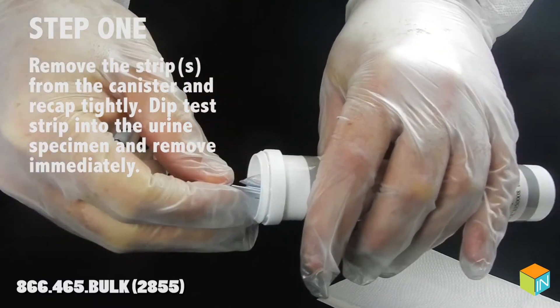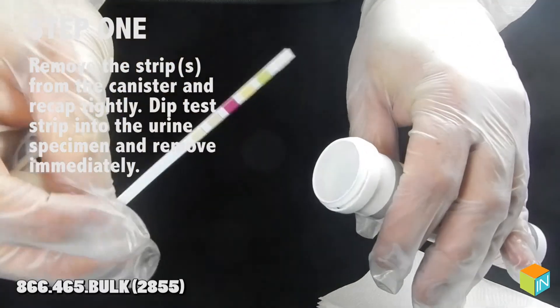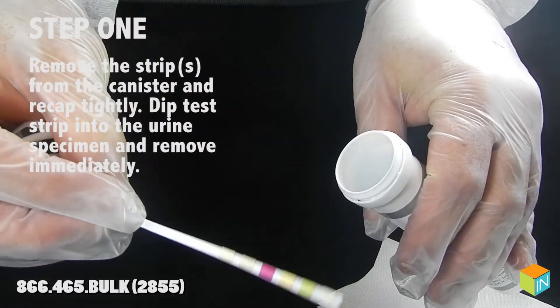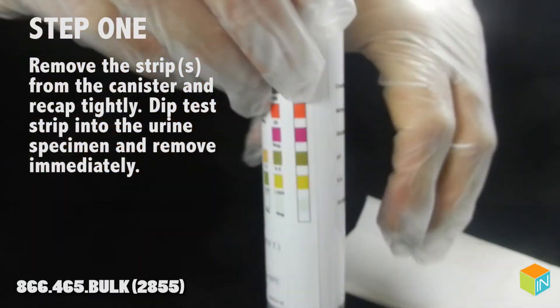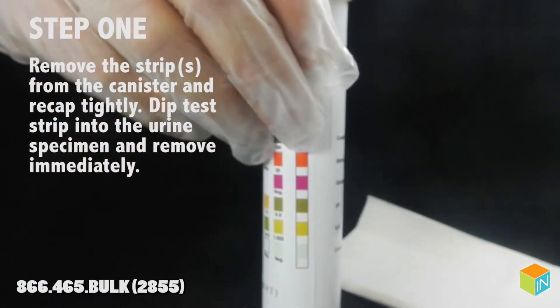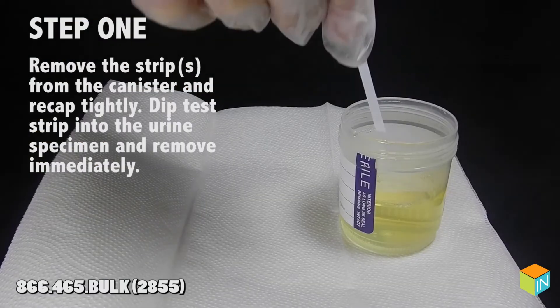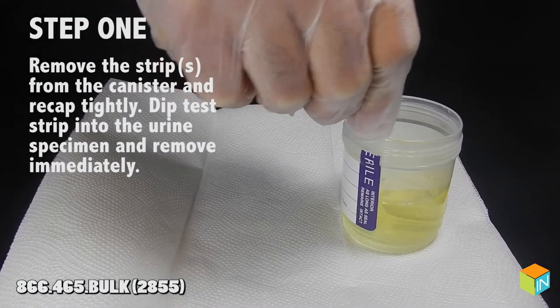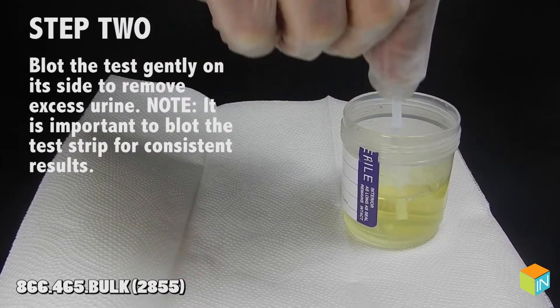Step 1. Remove the strip from the canister and recap tightly. Dip the test strip into the urine specimen and remove immediately.